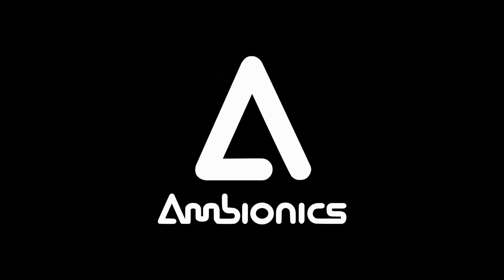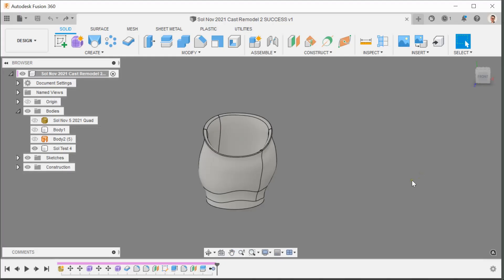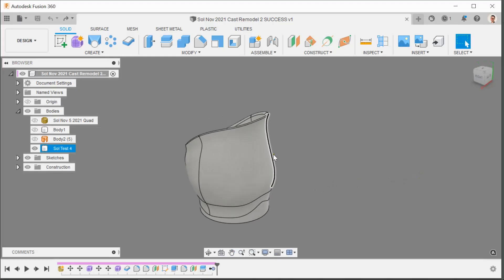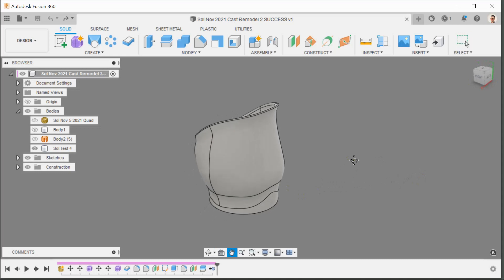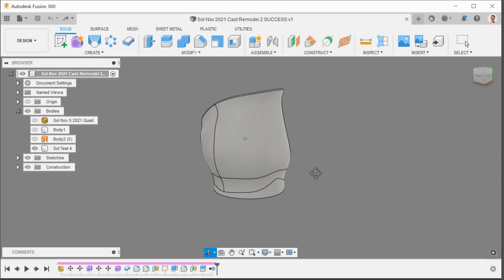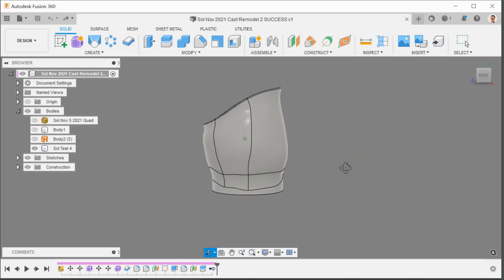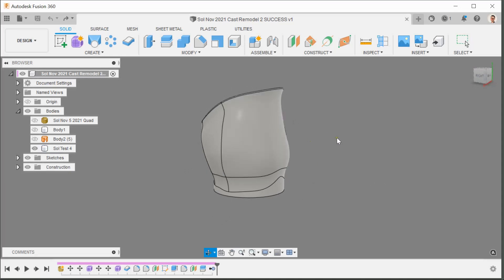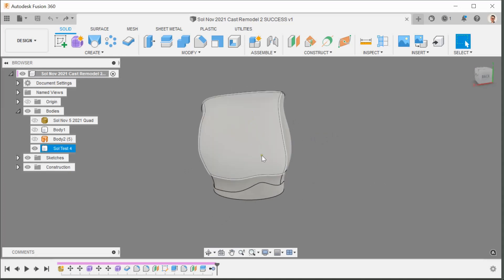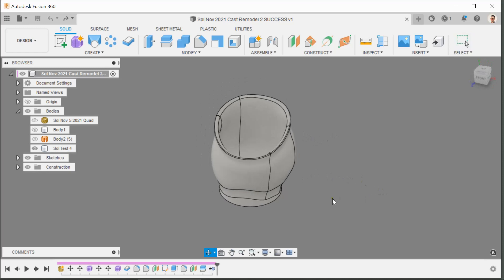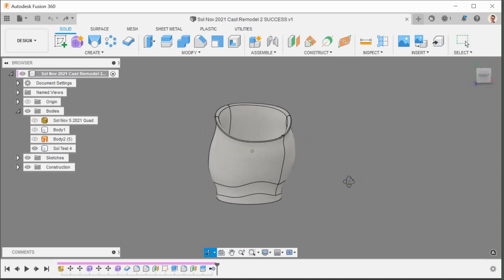What's up everybody, Ben here with a quick tips video on socket modeling. Here I am in Fusion 360. I've got a check socket that's a confirmed fit for Sol, but we have identified a little bit of an air pocket right at the back, so I'm going to be showing you how to modify that today.